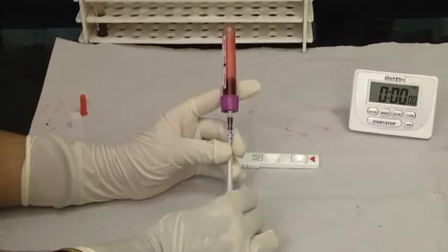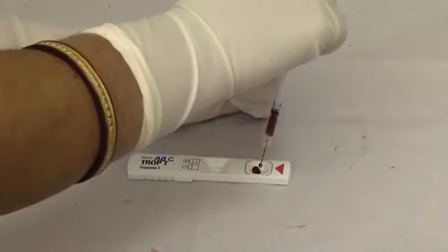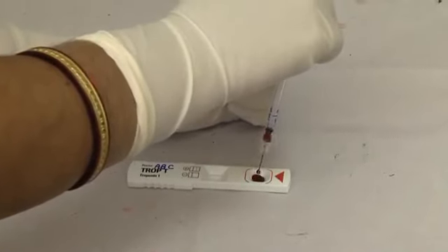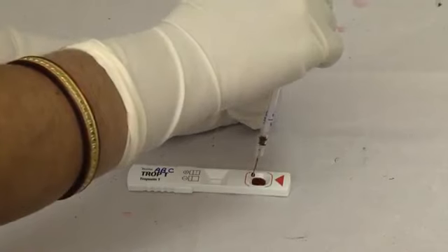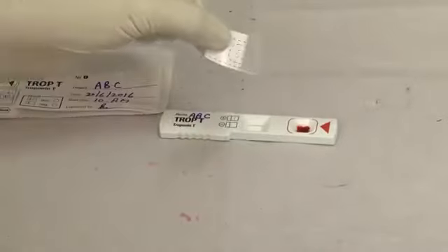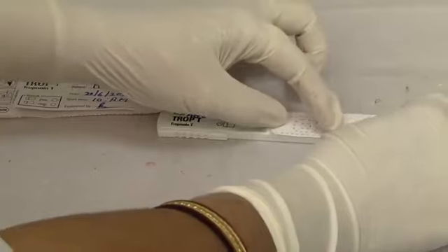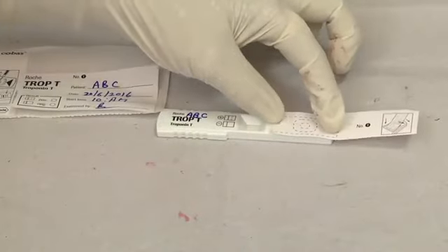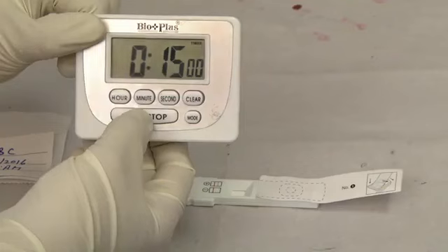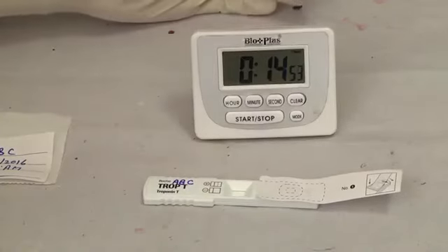Using the disposable syringe, aspirate the sample up to the arrow mark. Inject the total volume aspirated onto the application area. Using the sample transfer dropper, deliver the sample into the sample well. As an infection precaution, gently peel off the label and attach it to the documentation log or register. Cover the application area with a numbered cover strip provided with the kit. Read the result at 15 minutes or the manufacturer recommended time and record it on the label.